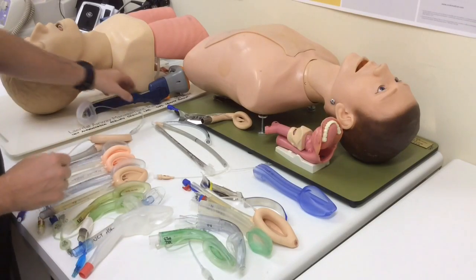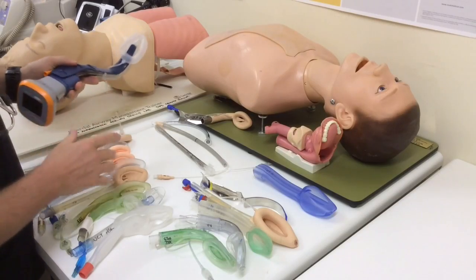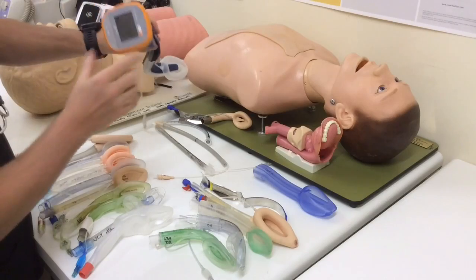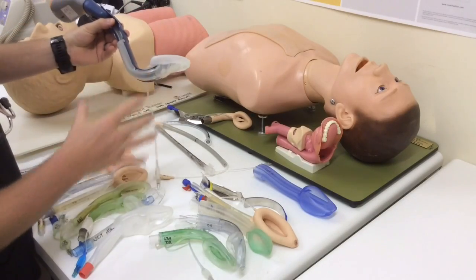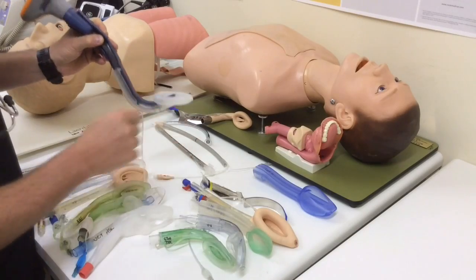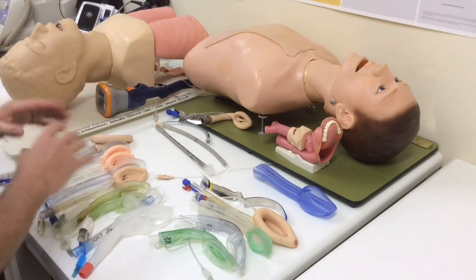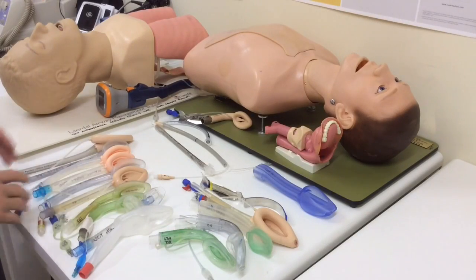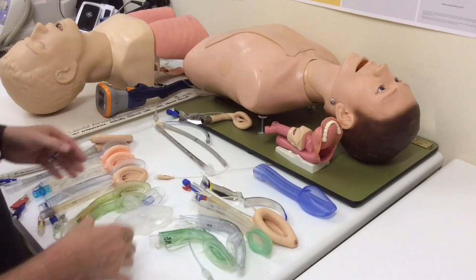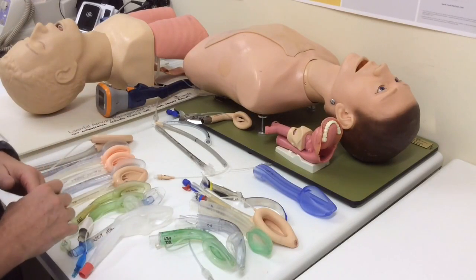And then there's an even more advanced concept behind intubating supraglottics, and that is adding some kind of camera capacity or visual capacity to a supraglottic, which allows you to intubate through the supraglottic under direct vision. We'll cover that in a later video as well. So, widespread of supraglottic devices, sealing in all sorts of different places, allowing gastric drainage, allowing protection against aspiration, and potentially allowing intubation.